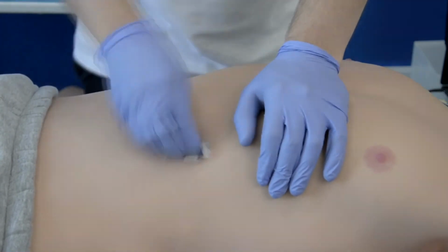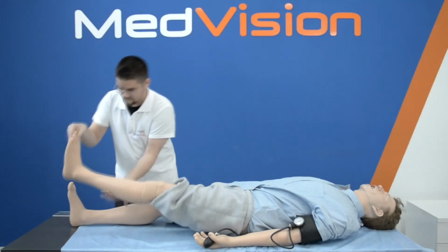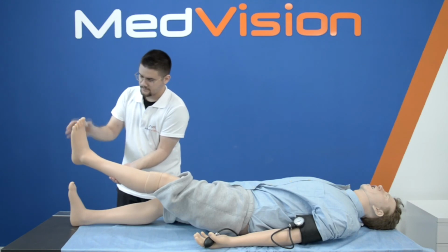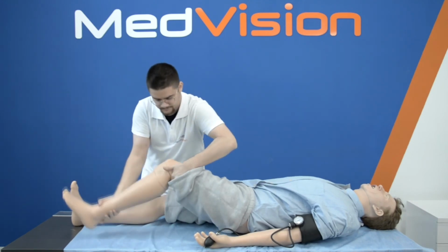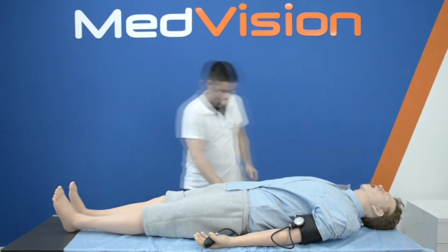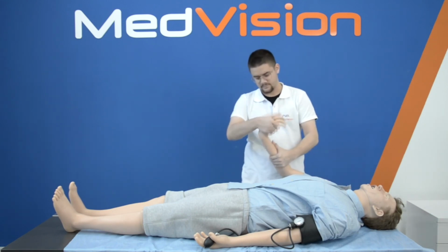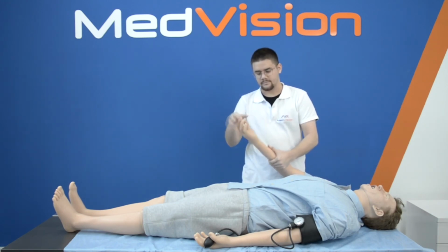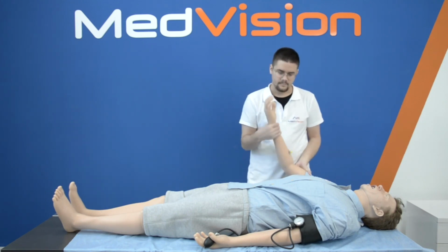Leonardo has realistic flexibility in all of his joints, and we at MedVision like to bring attention to detail, which you can see in actual kneecaps, soft hands and fingers, skeleton structure, mushy muscles, palpable ribs and soft skin. This is a case where it's best to see for yourself in a live demo. You can have Leo sit, put his arms behind his head, raise his knees, do prone position ventilation and more.